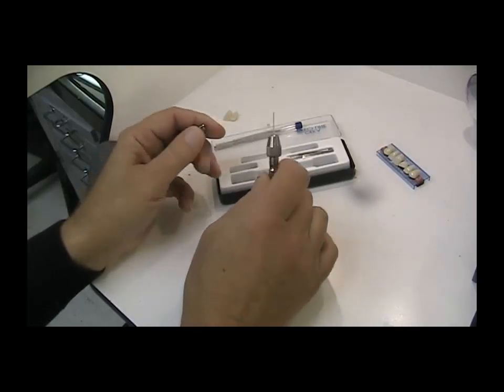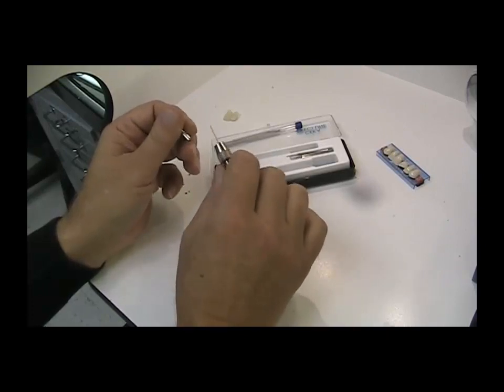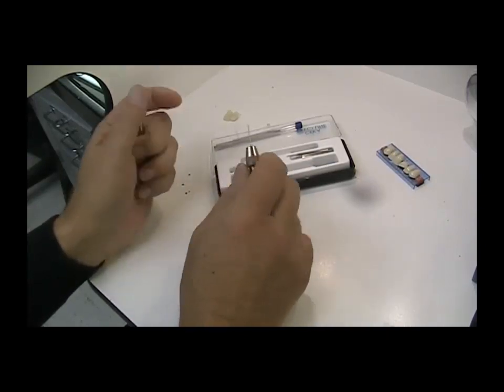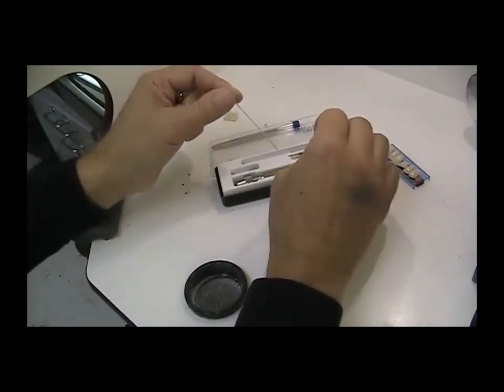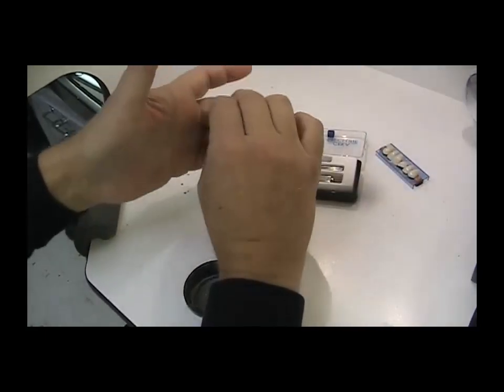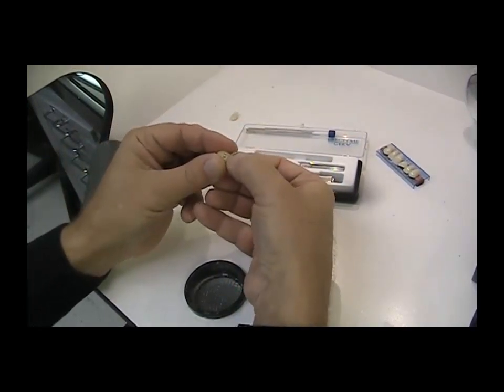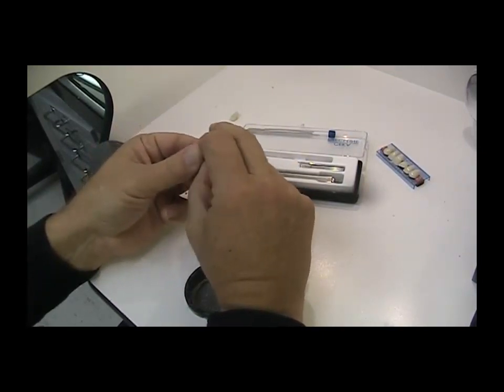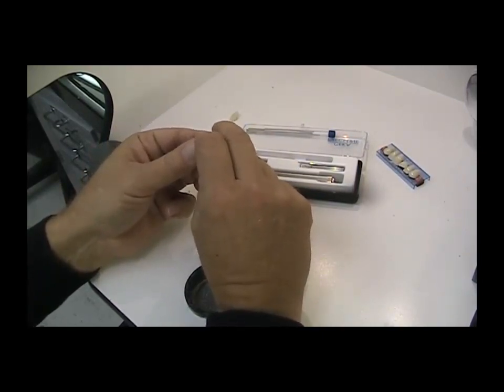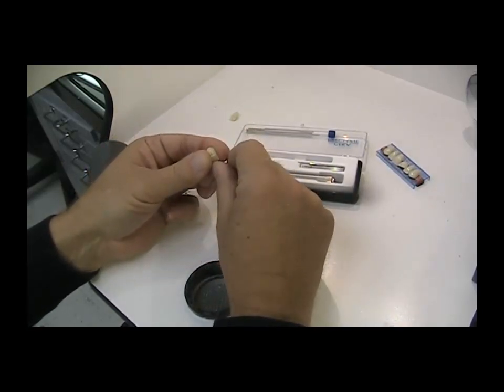When we're setting teeth — literally putting the wires in the back of the teeth — it makes sense to want something quick: tap the hole, screw in the wire, snip it, and be done. So that is the kit itself: the wires, the holder, the twist drills — a complete kit so you can start tapping these pins in the back of the teeth. I'm going to step away for a second and then take you through a few tips you'll want to know about if you want to start incorporating this into your fabrications.